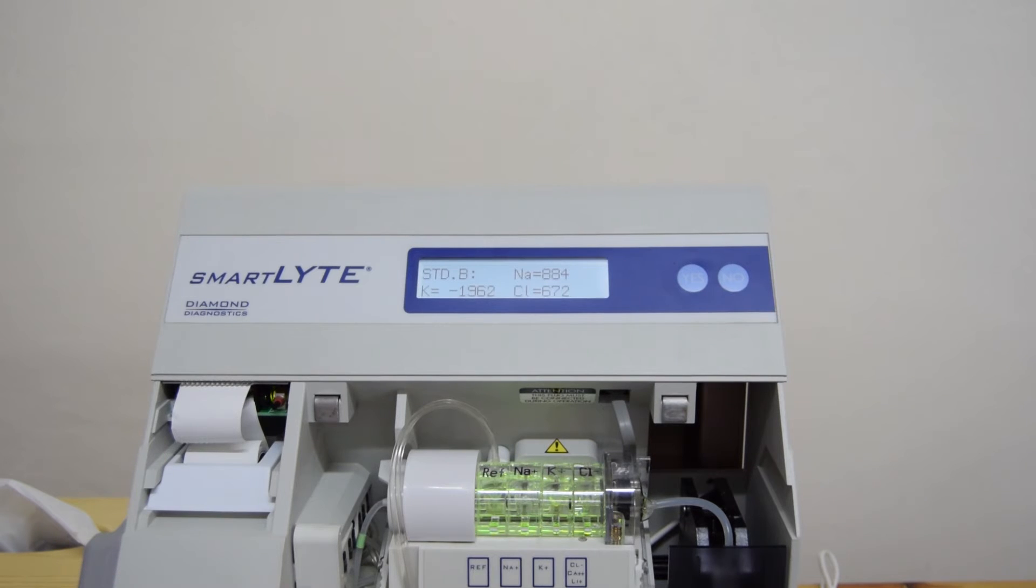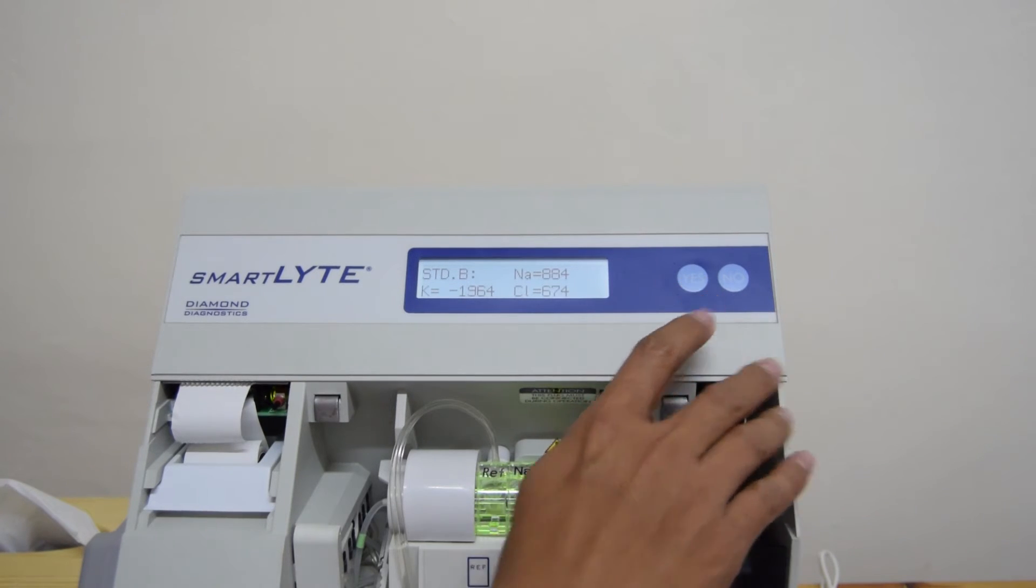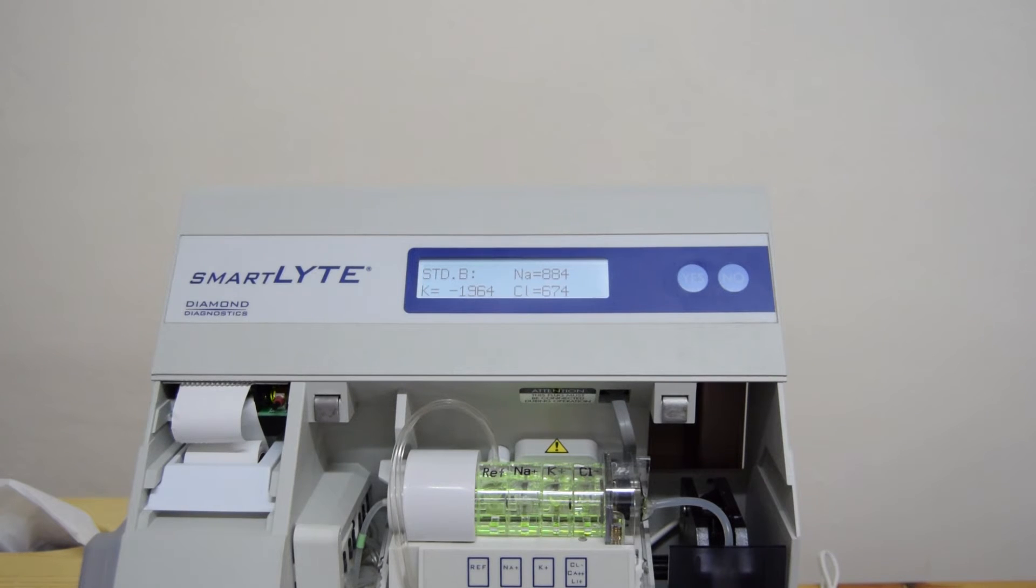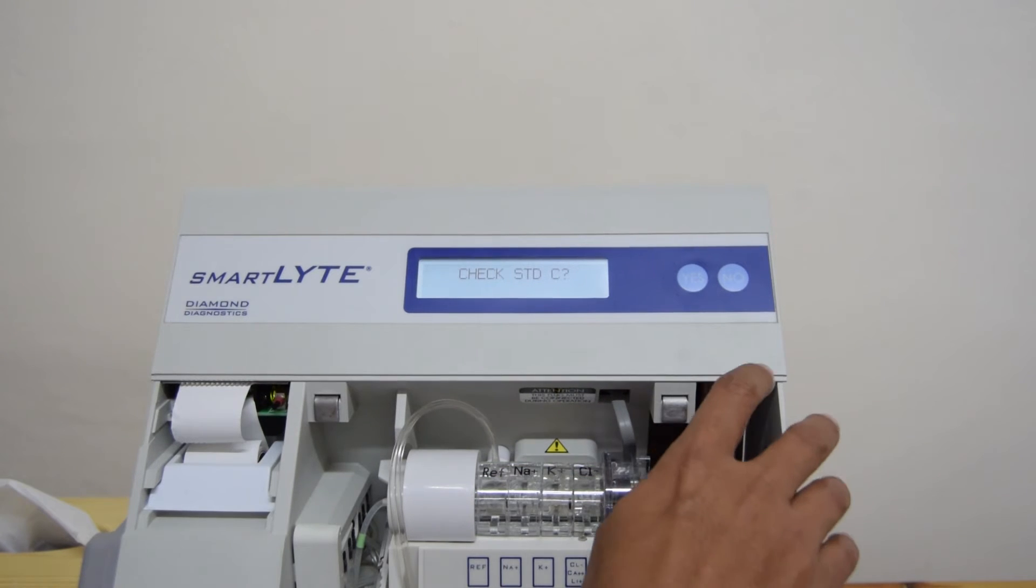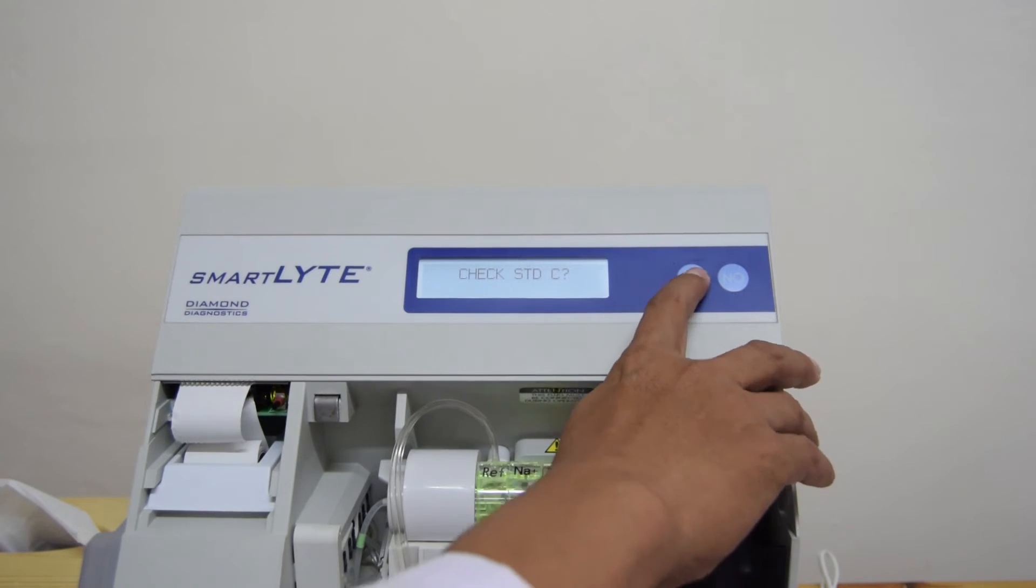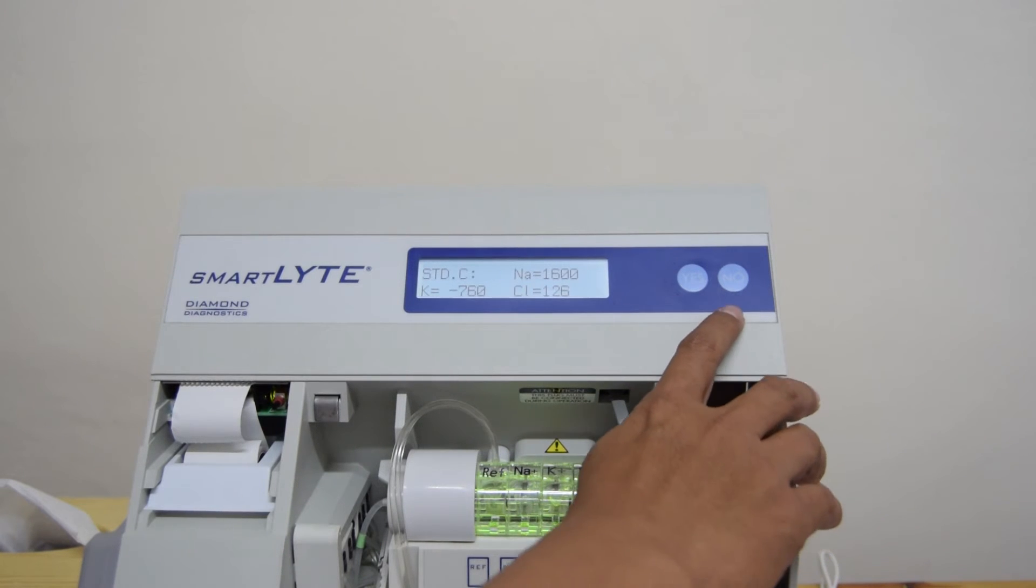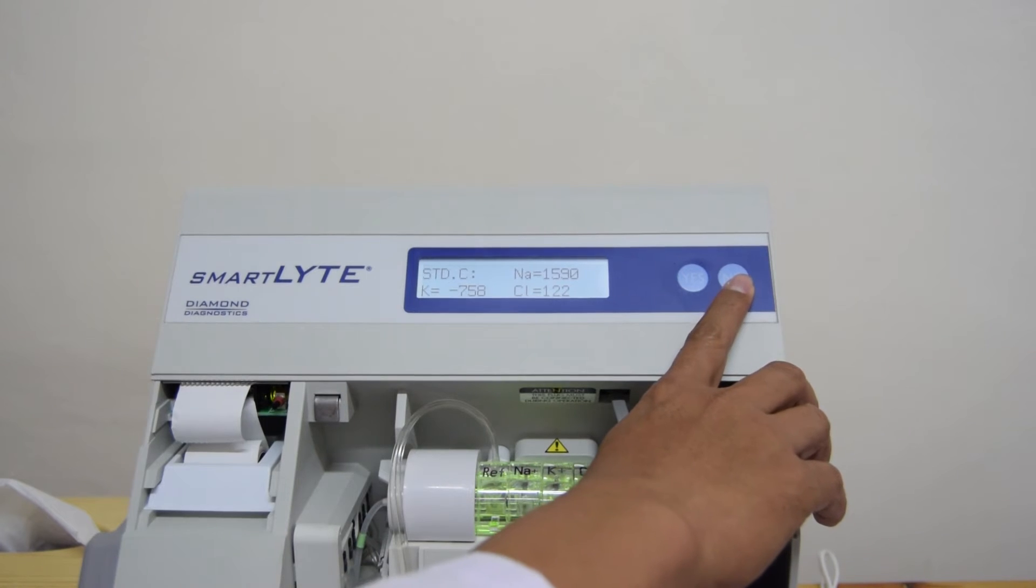Kita lanjutkan dengan pengecekan standar C. Check standar C, yes. Sudah selesai juga dengan angka yang dapat dilihat. Kita kembali.